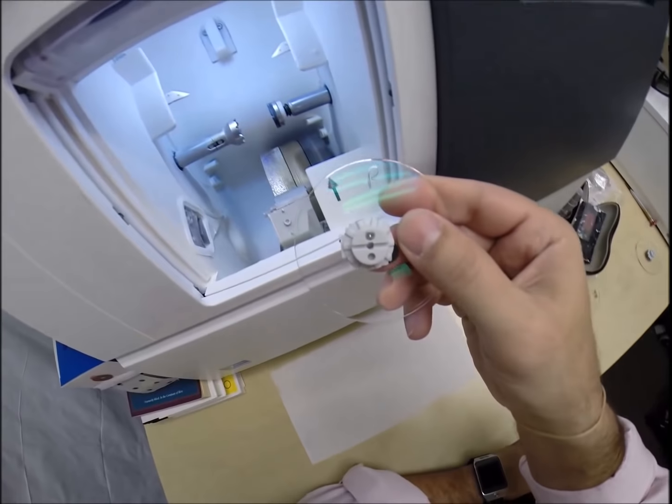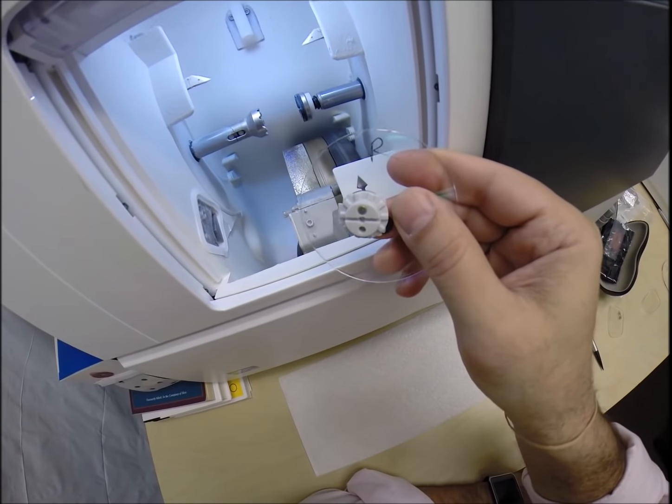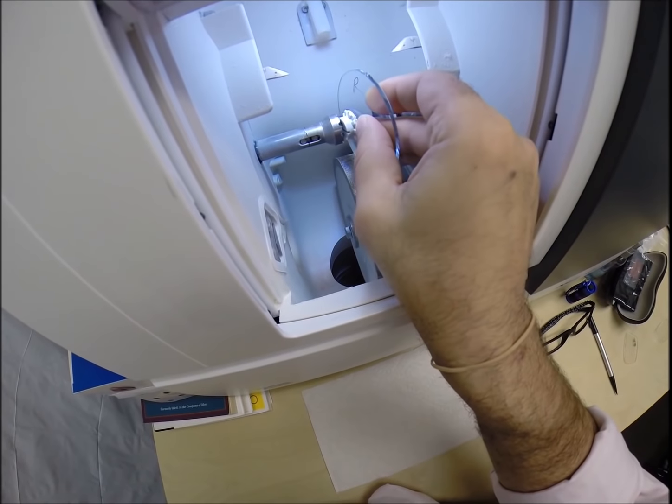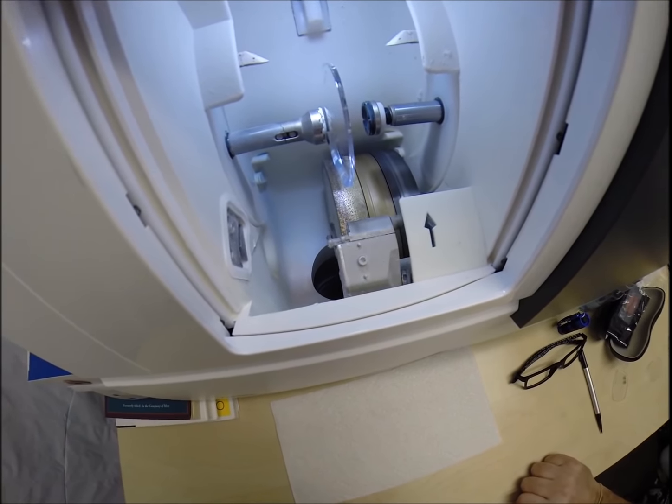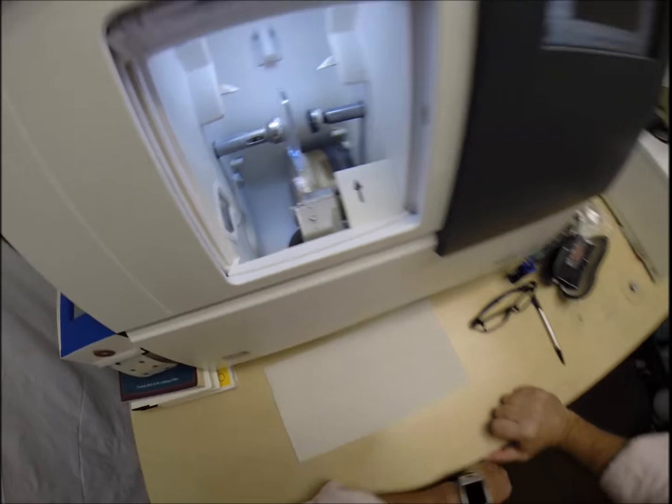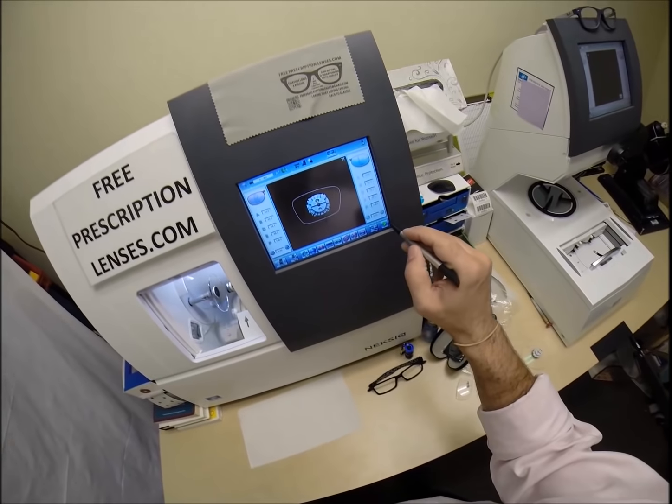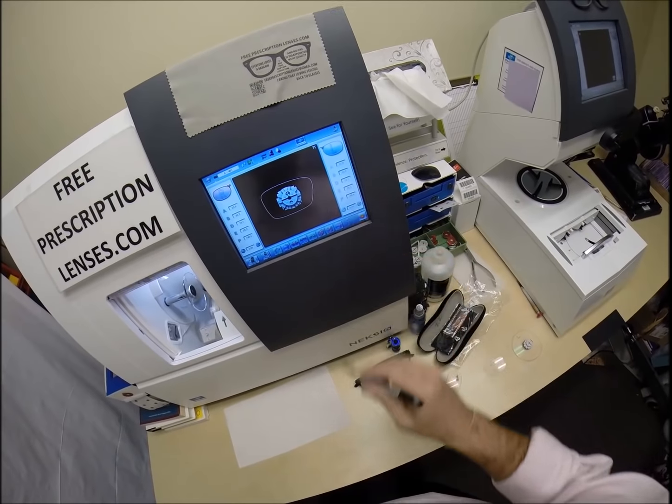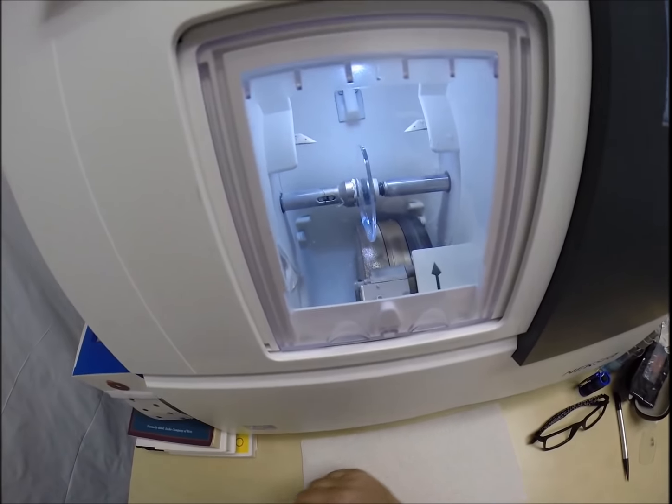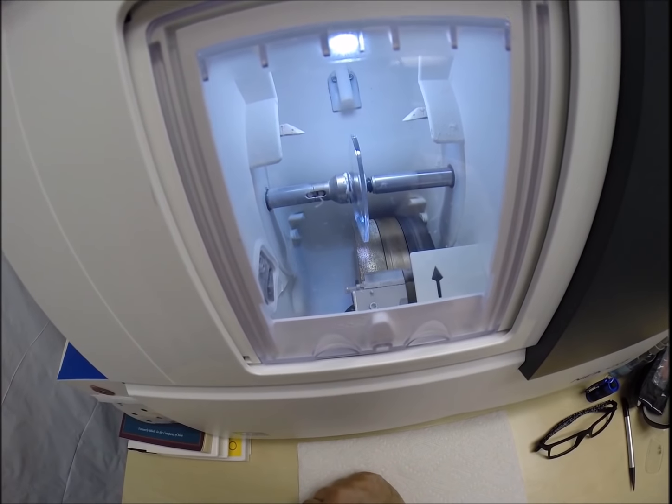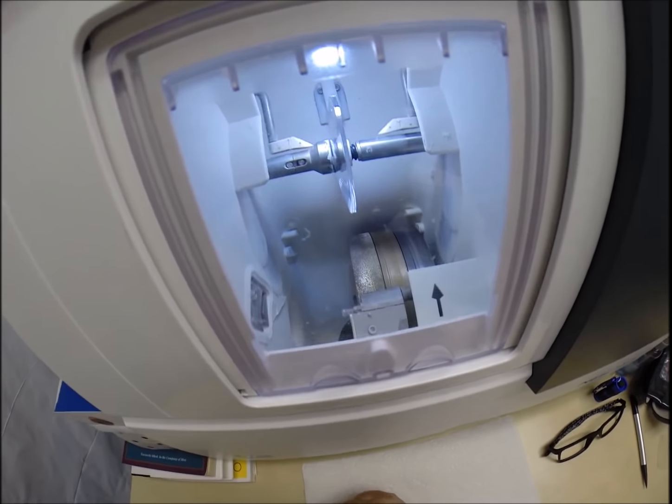The magnet, it's going to do its job the last time today. The second time, it's going to attach itself to another magnet there in the chuck, or as I like to call it, the Charles, because I don't know this machine well enough to call it chuck. We hit the green arrow, which is start in every language. And yes, someone who was watching before, I cleaned the door. They said, notice something was different. So I did clean the door so you guys could see a little better.